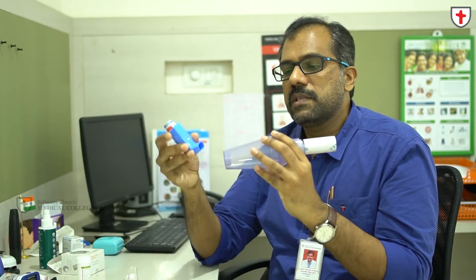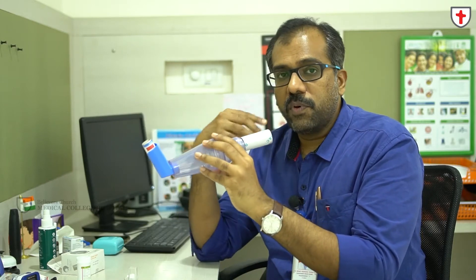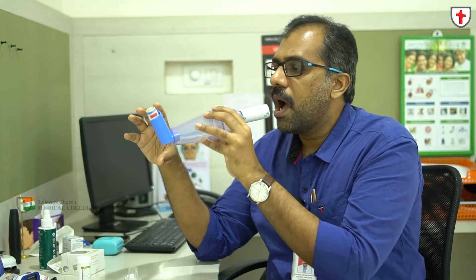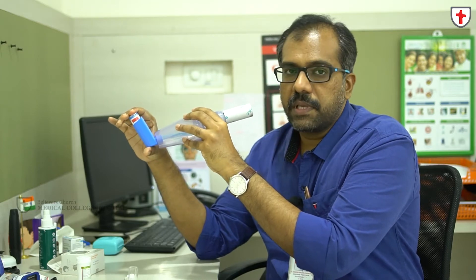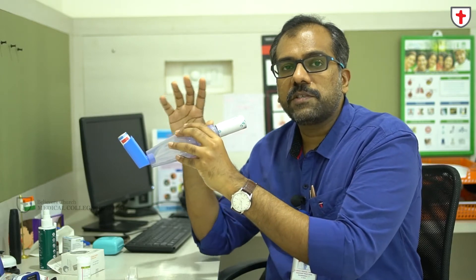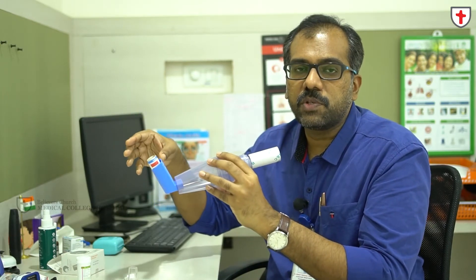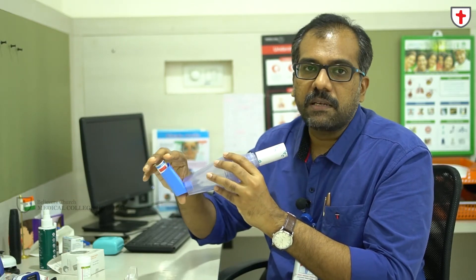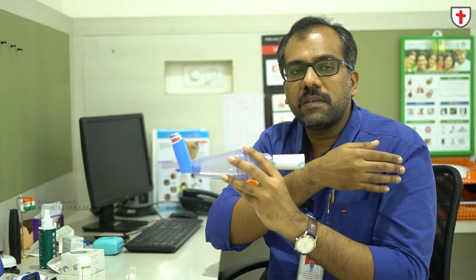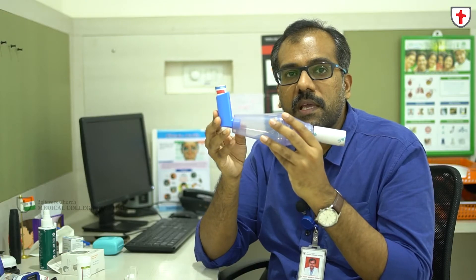Here are the complete steps: shake the medicine, insert it into the port, attach your mouthpiece, and before inhaling make sure you exhale everything out. Keep it in your mouth, press the canister, and take deep slow breaths. Take a deep breath, hold for at least 2 to 5 seconds, and exhale deeply. For one press of the canister, take deep breaths 5 to 10 times, holding and exhaling each time before the second press.